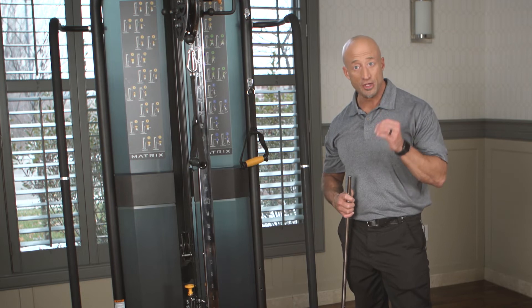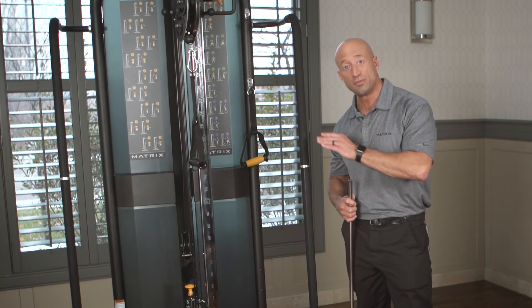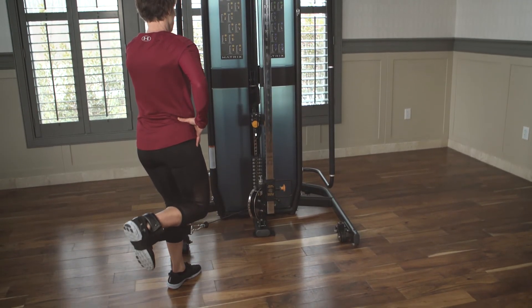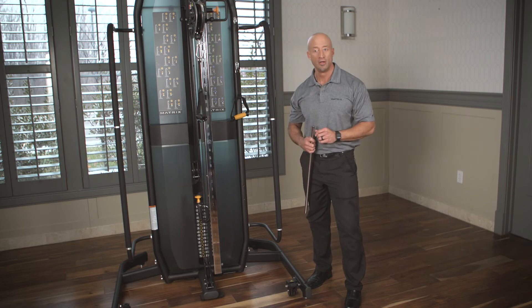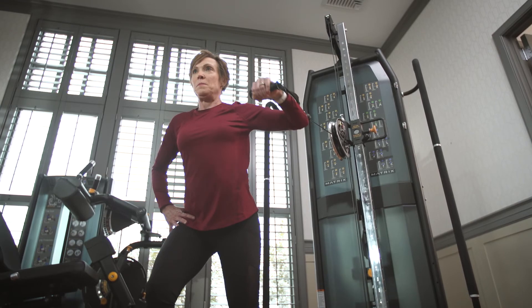Very simple and easy to use, but a huge impact for clinics that are limited on space. Now they have the ability to move the machine out into the center of the room where they want to do larger, more functional exercises, but then put it back into a corner when they need to do more body work or have other activities happen in the middle of their space.